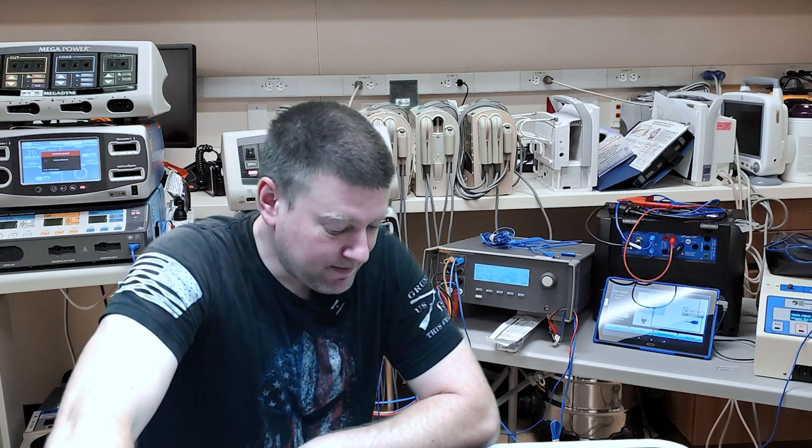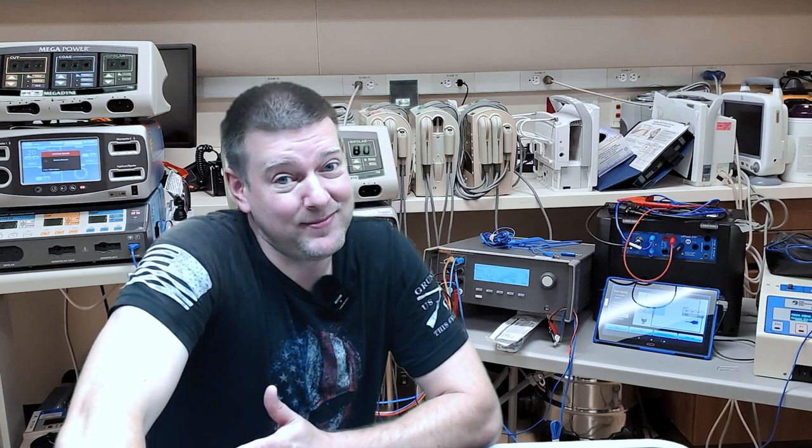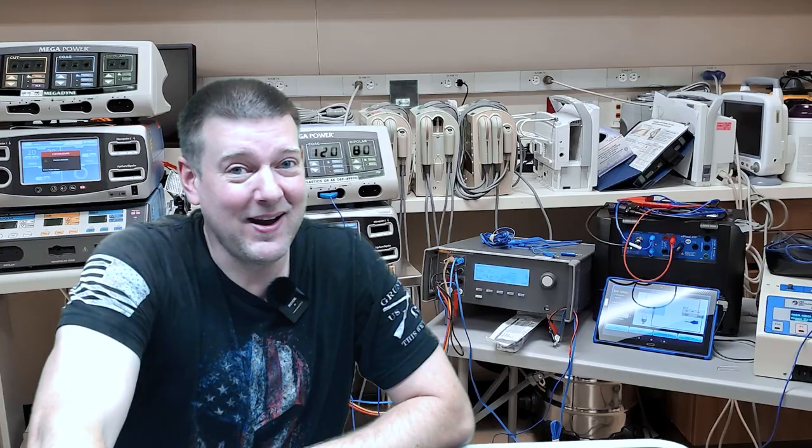Customer says it's got a leak. And to be honest, I don't even really know what this device does. Don't even know what to call it. So today, unknown troubleshooting — coming up next, right here on BetterBioMed.